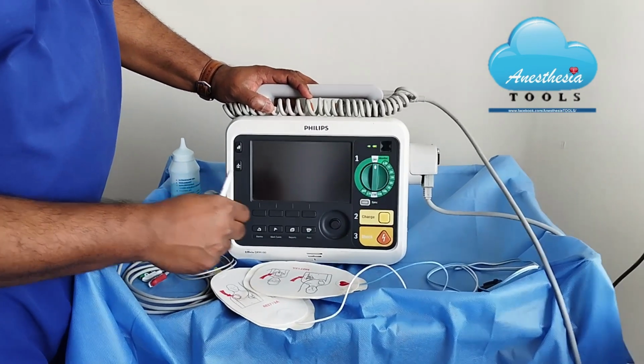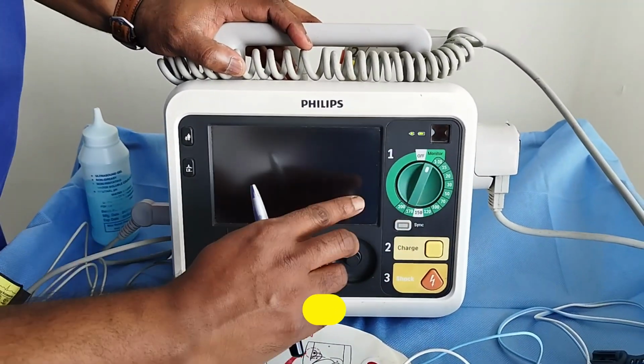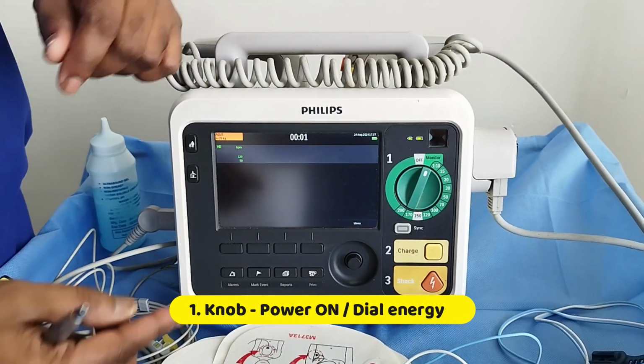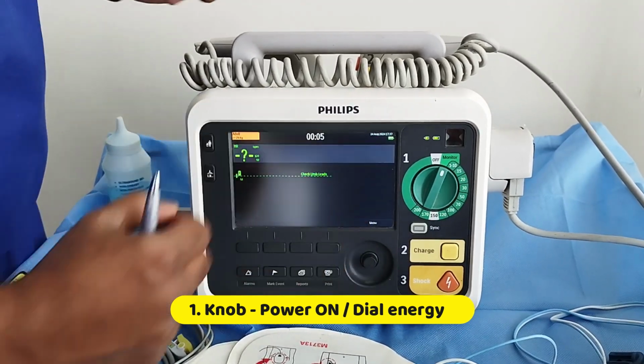Looking closely, here you can see an on off button. This is from off position, I am changing to on. So this is for monitoring purpose. You can attach the ECG leads and monitor the ECG in this screen.